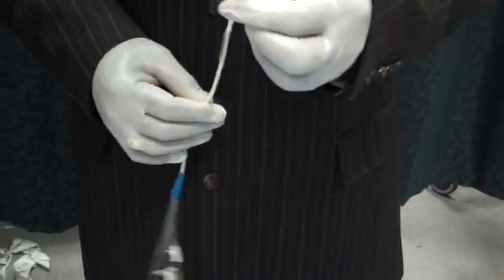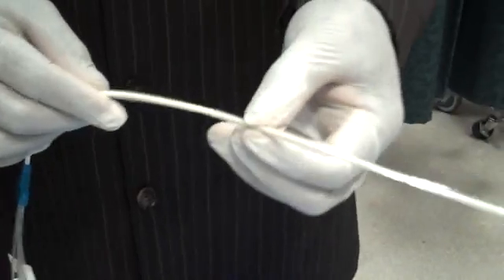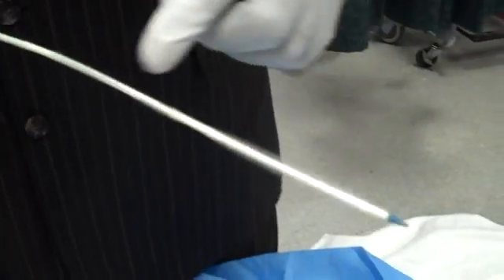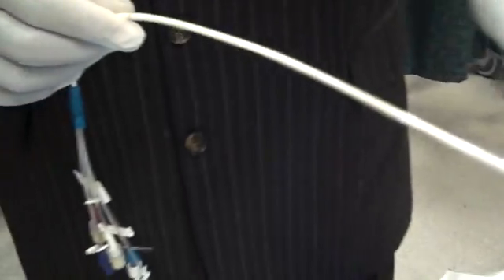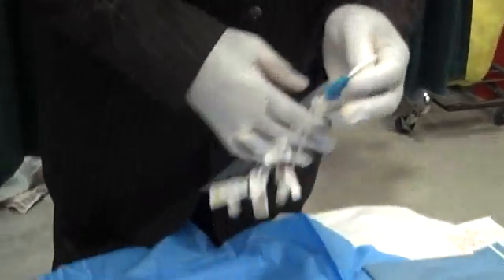It is a 9.3 French catheter. You have a distal, medial, and proximal port just like any other triple lumen. And you have these three balloons that the saline circulates through in a closed loop system when it's inserted into the femoral vein.